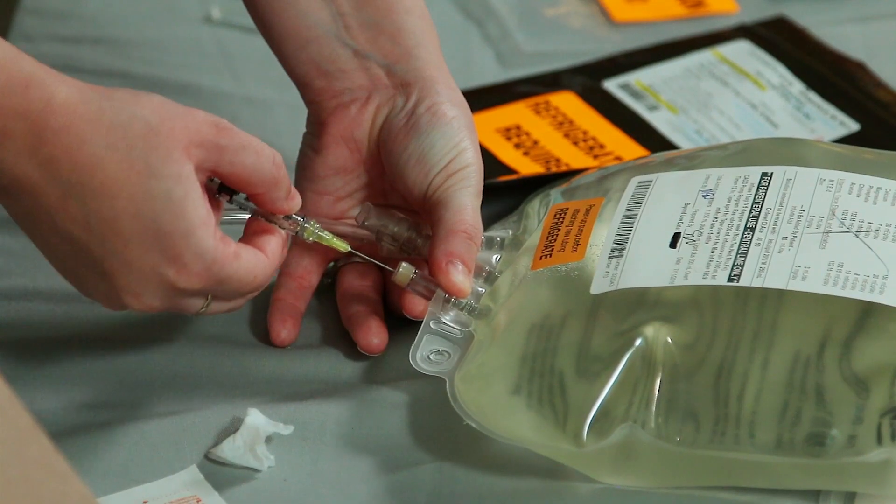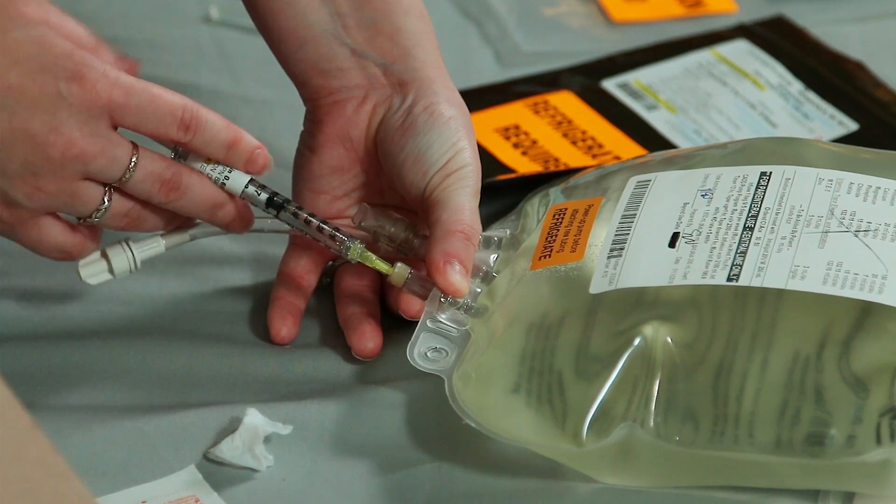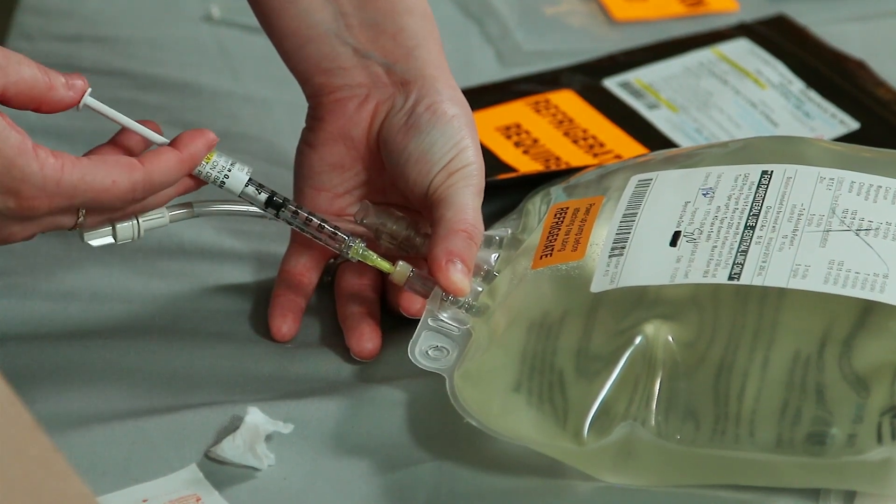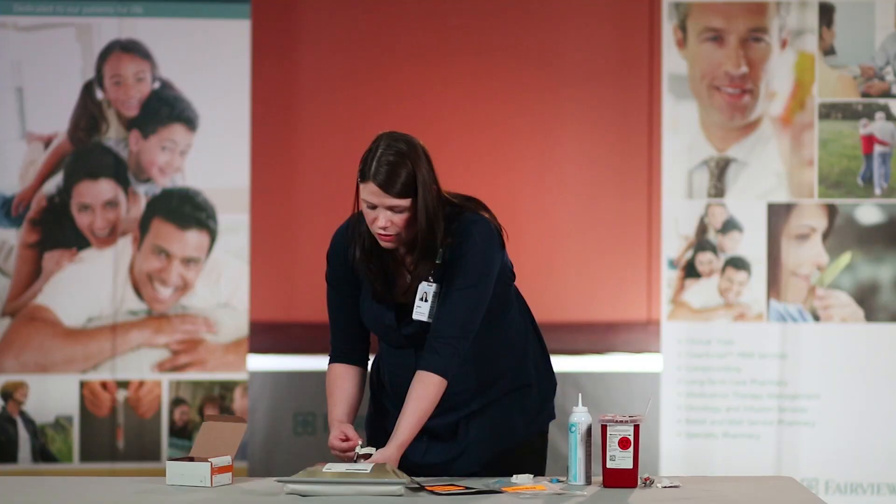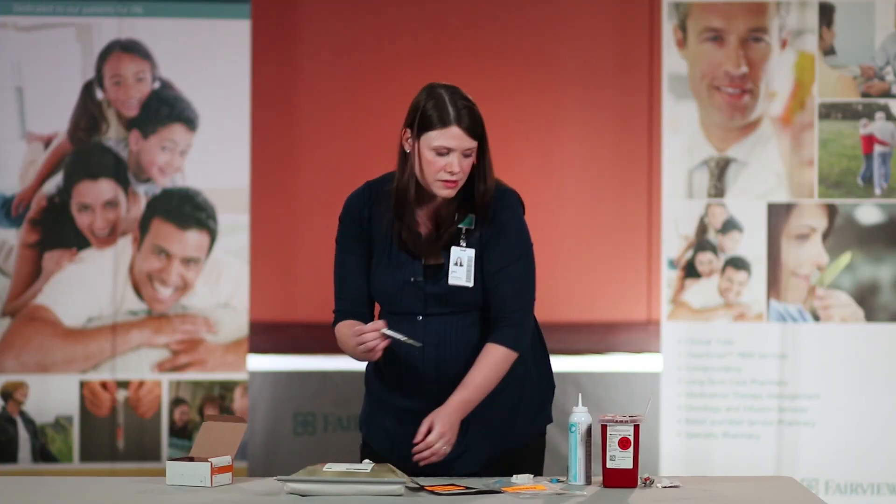Insert the needle into the port of the TPN while stabilizing the port and instill all of the medication. Remove the needle and discard in the sharps.